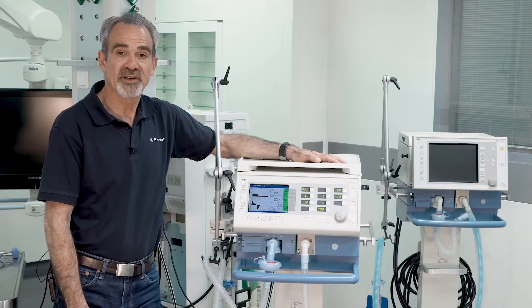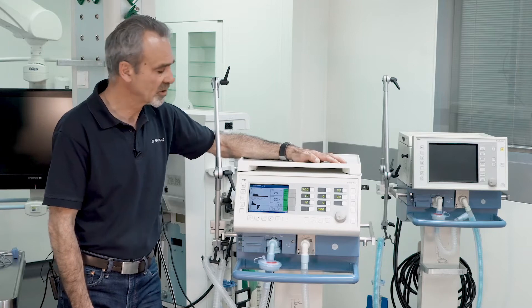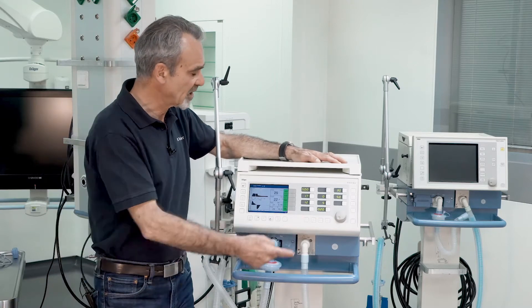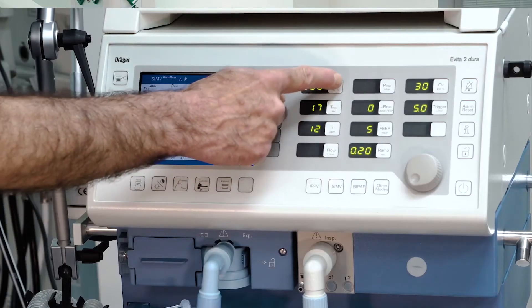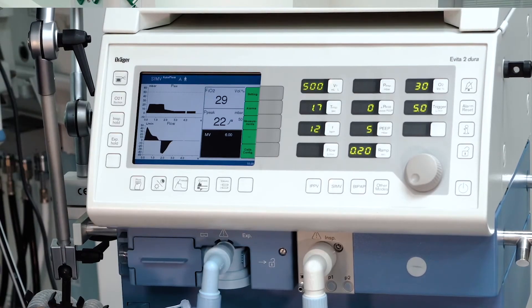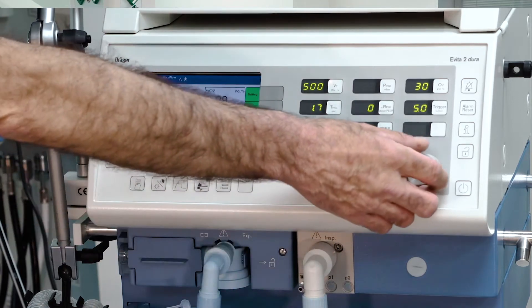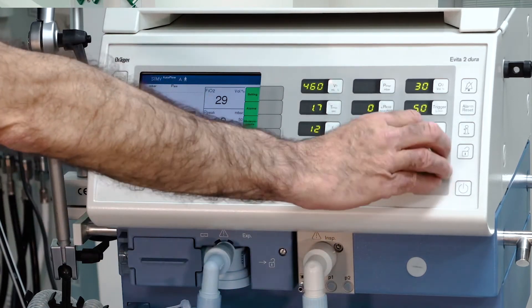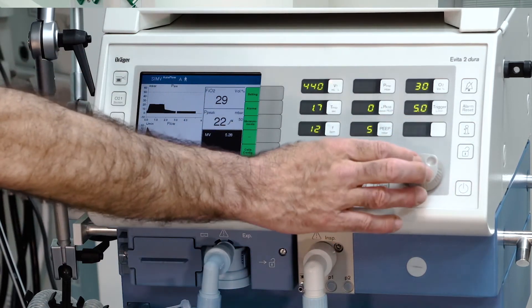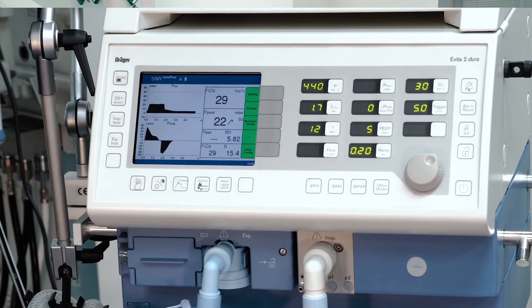To adapt parameters in the current ventilation, just select the parameter by pushing the button, change your value, and confirm with the rotary knob.